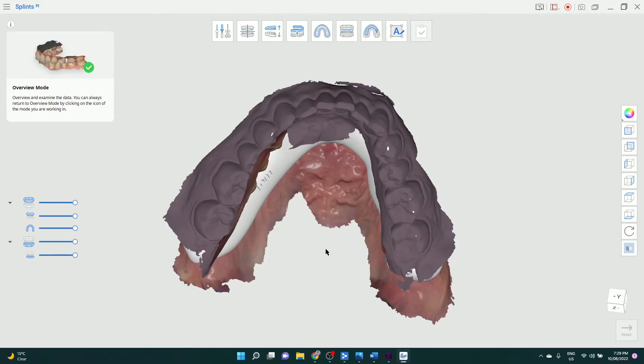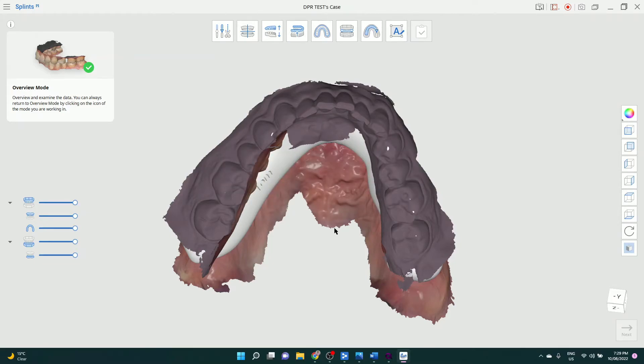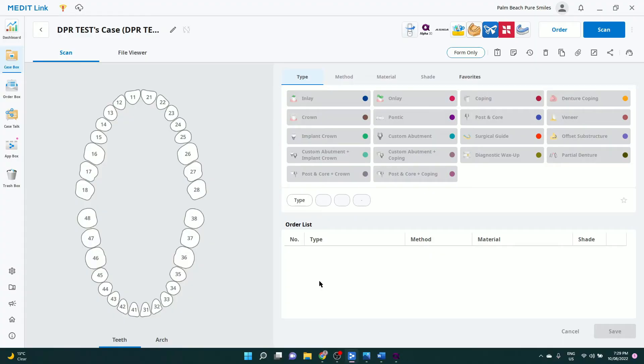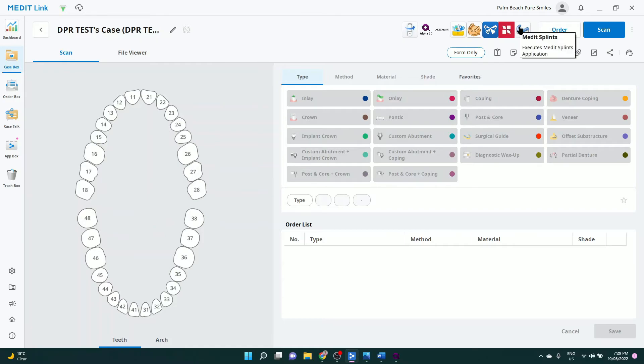So reasonably straightforward. Our staff can use it - there's not a problem at all. The Medit software is quite intuitive, really predictable. Not much can go wrong. You can change all the little bits and pieces in internal fitting parameters, the exterior bite, but the AI one-click gives you something that's pretty usable.